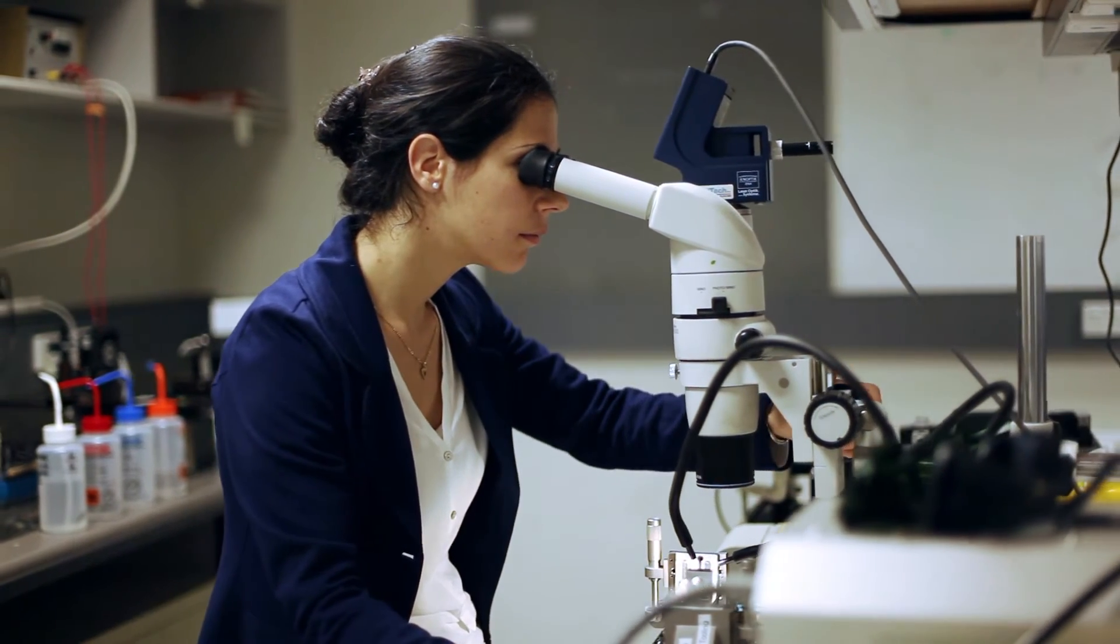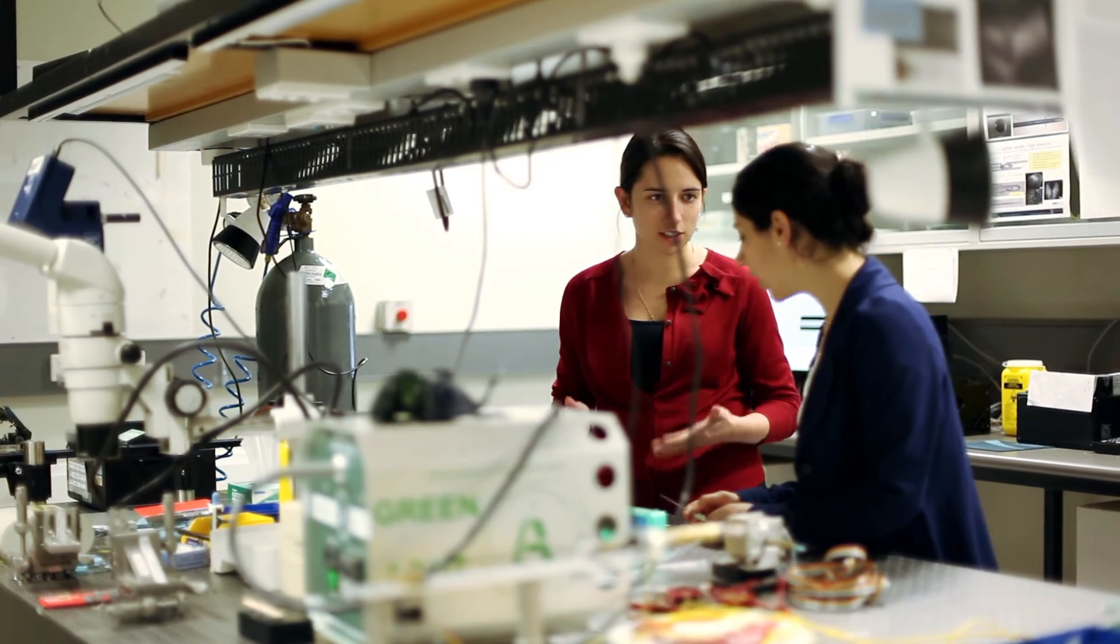With that three-dimensional image we can see very, very small bits of cancer and we can tell whether we're in normal tissue or whether we're in cancerous tissue. So the surgeon can be informed on the spot exactly how well they're doing and whether they need to remove more tissue.